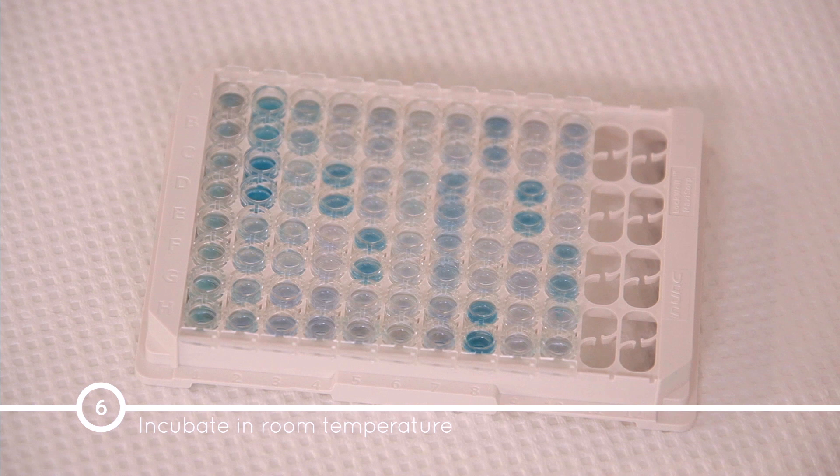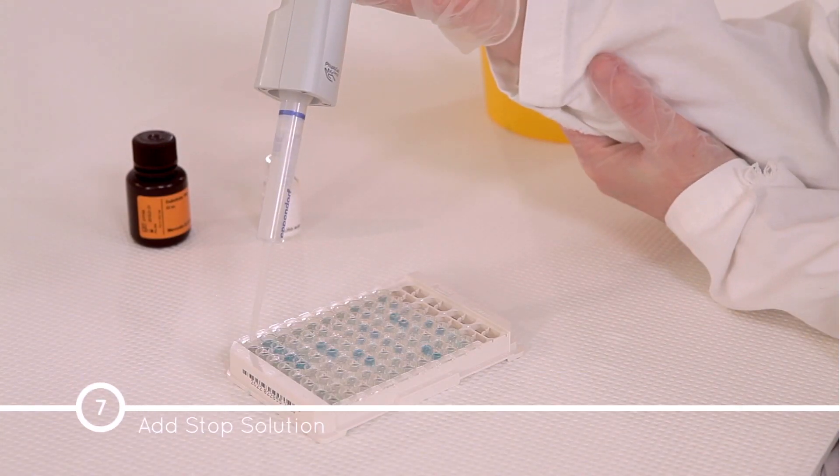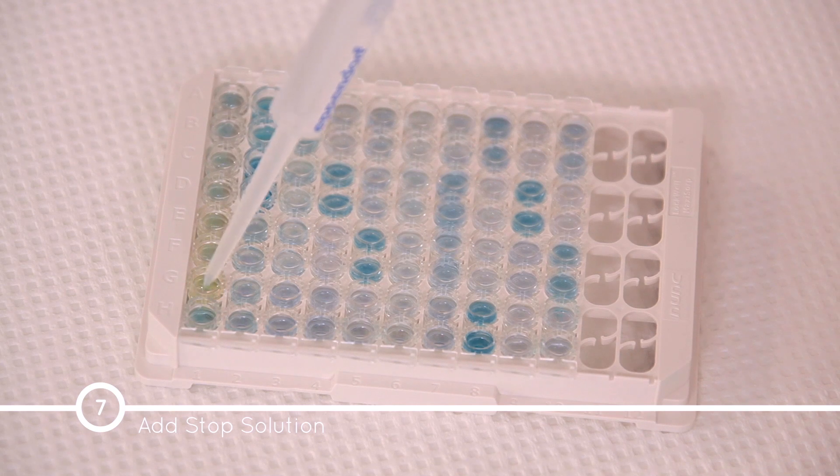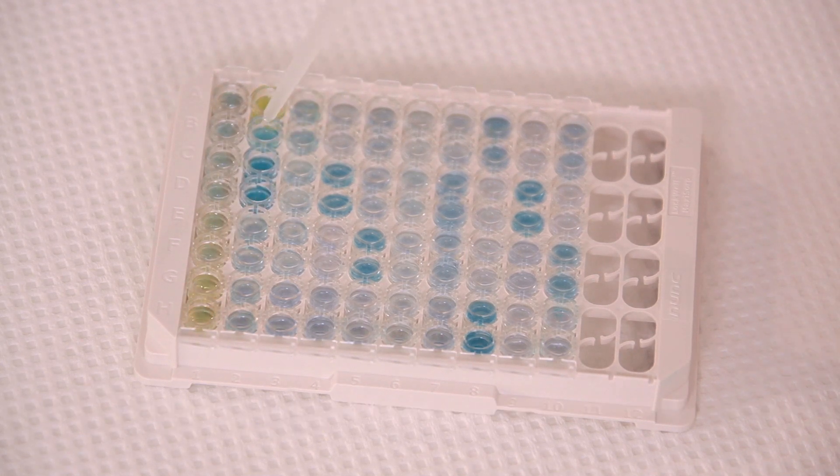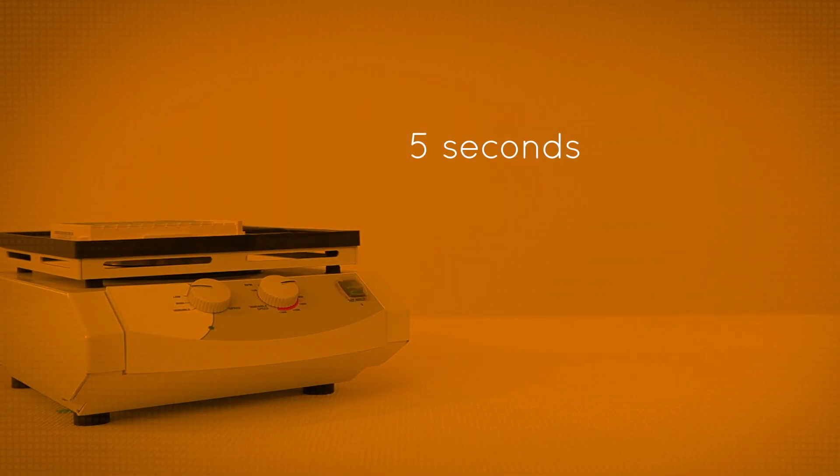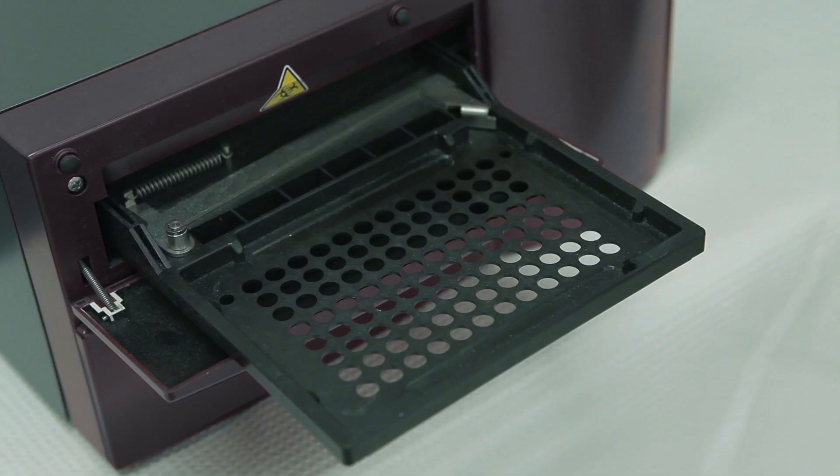After the 15-minute incubation, add 50 microliters of stop solution into the wells. The solution will turn yellow. Place the plate on a shaker for 5 seconds to ensure sufficient mixing.